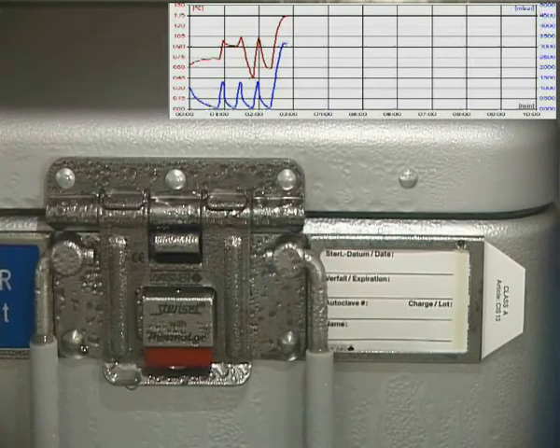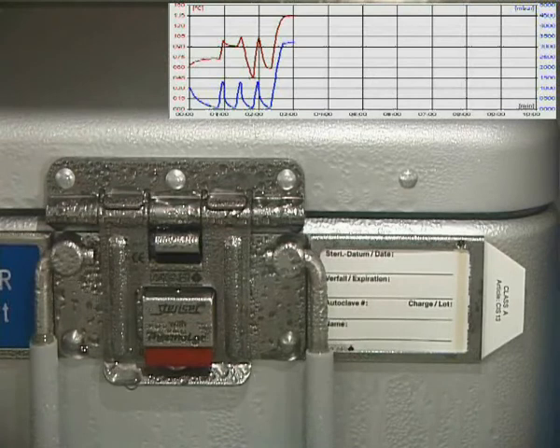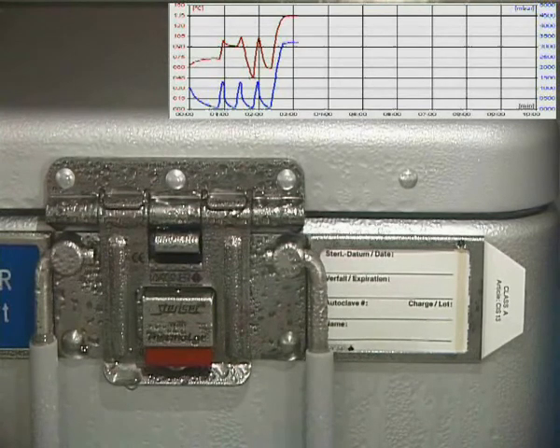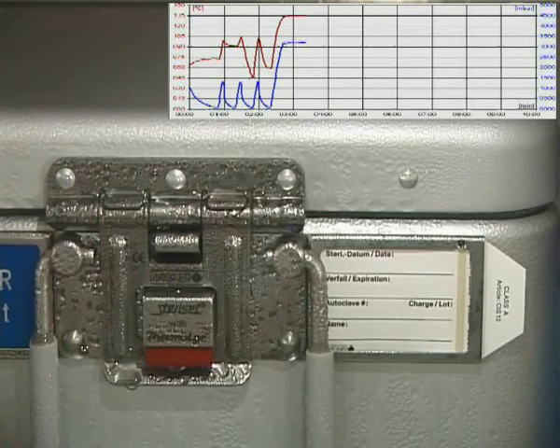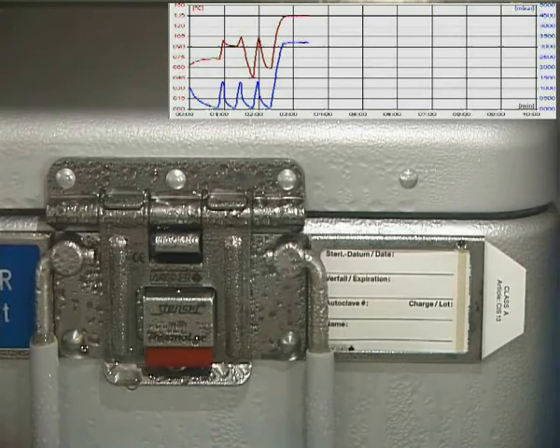And it's important to understand that now everything is apparently wet, completely soaked. And this is not a failed situation. It's the intended purpose of steam sterilization, to have condensation formed and temperature introduced by the condensation.